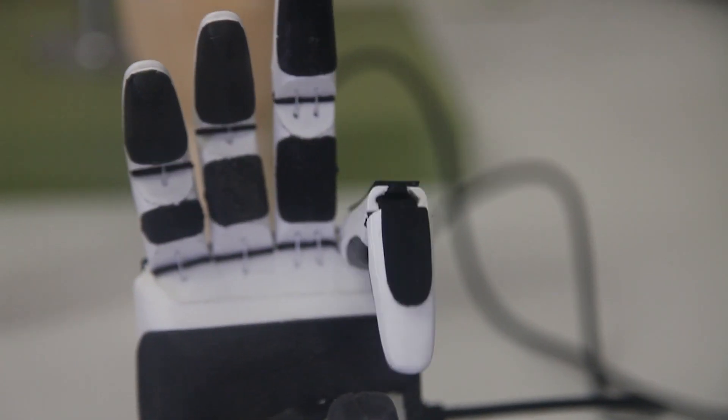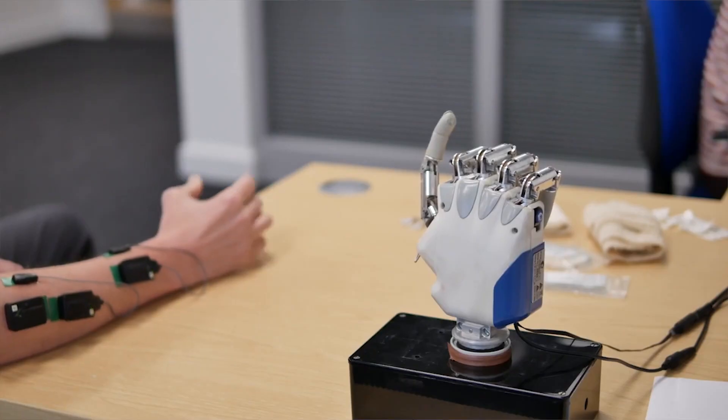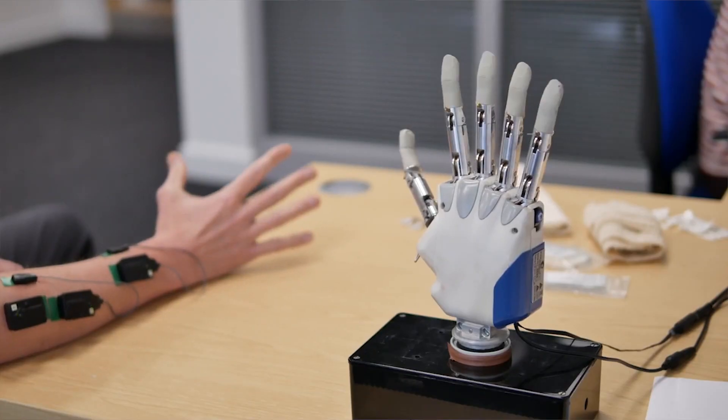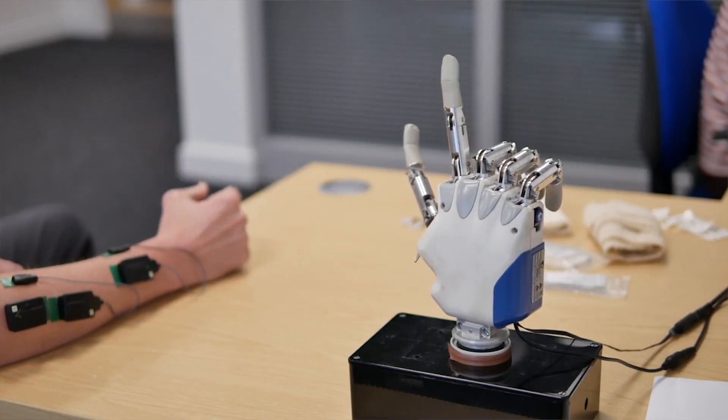There are some really nice prosthetic hands on the market right now that offer great flexibility of movement. They can almost replicate the full range of movement of the natural hand, but controlling them is really difficult, so they're not used to their full potential.